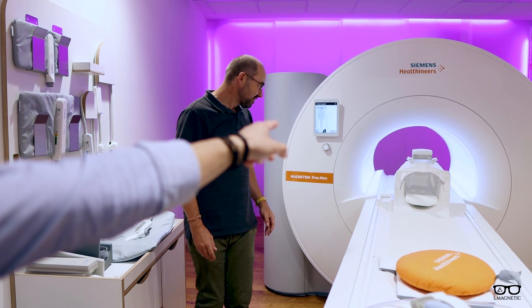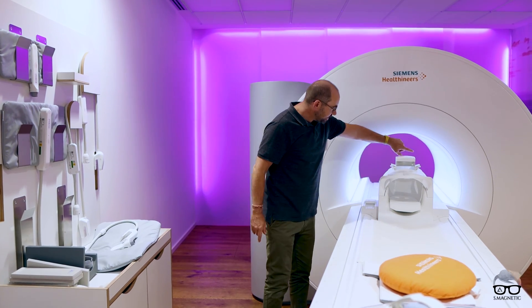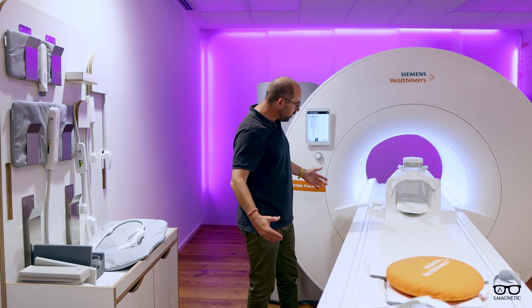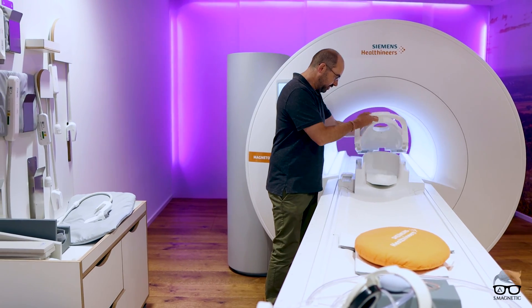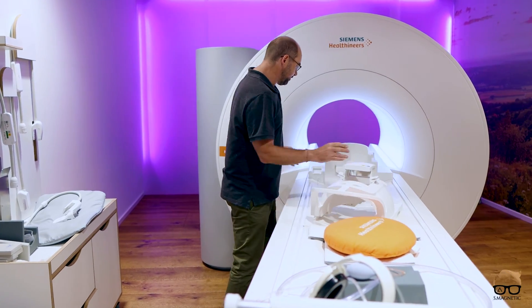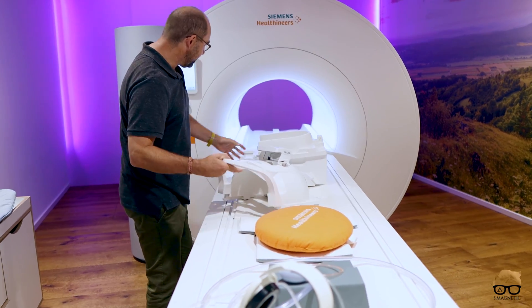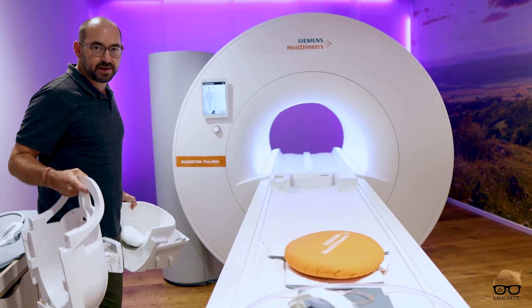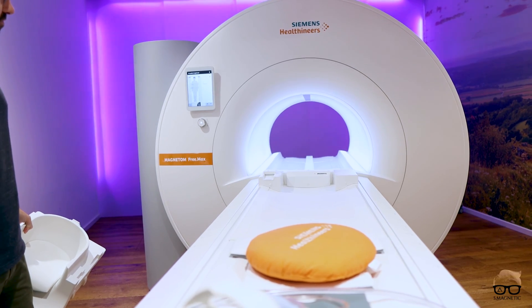Check the bore opening — it's 80 centimeters, right, Benny? We've got 80 centimeters here. Wow, it's big. And the head coil — can you open that one? The head coil is pretty cool, pretty much like every other head coil. But you can see how much space there is in that bore. That's a lot of room. Wow, looks big.